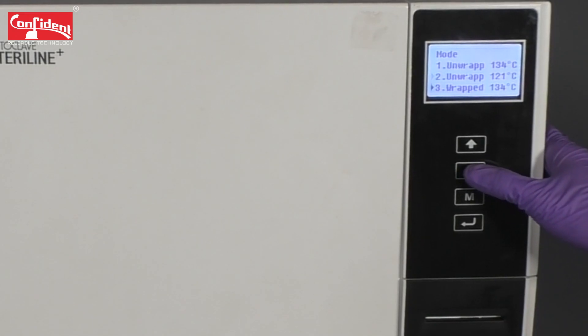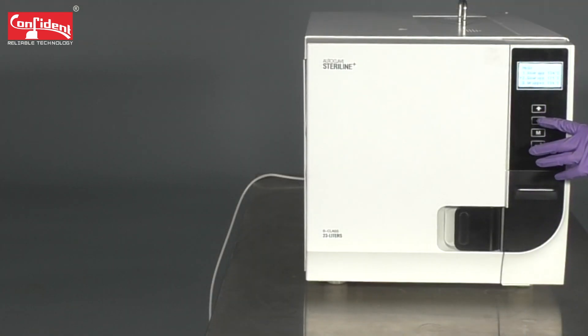Now, select from these options. In this case, the device is unwrapped. Hence I am going to choose the unwrapped option and then press the enter button to start the sterilization process.